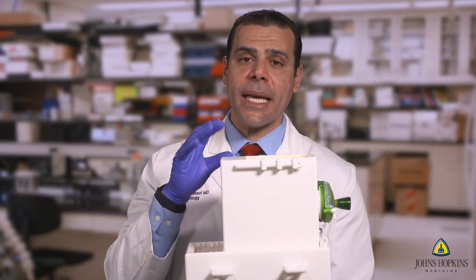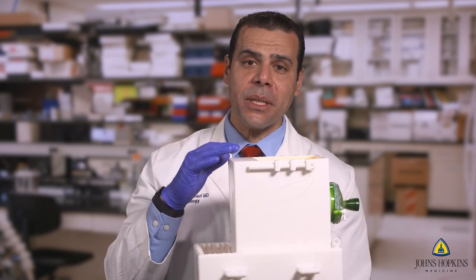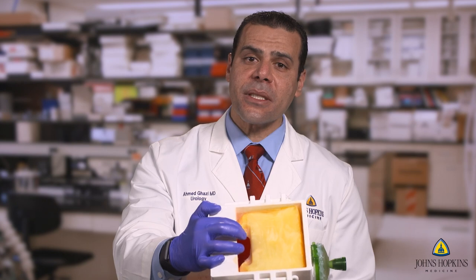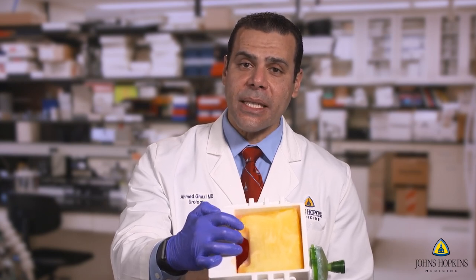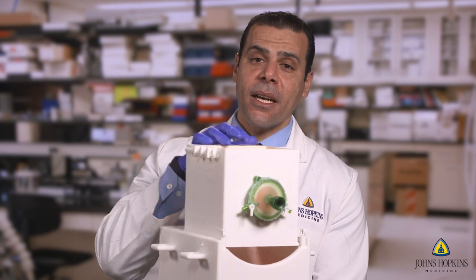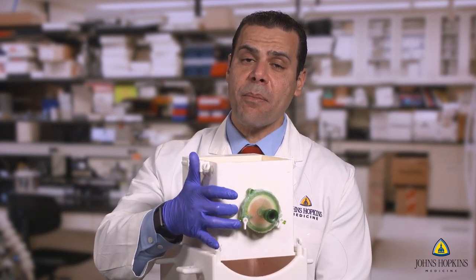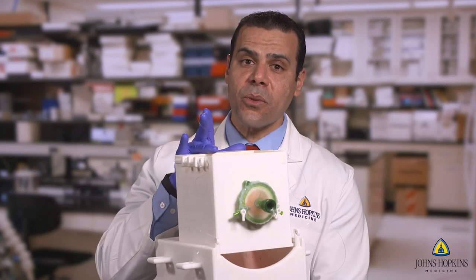This is the casing of the actual model that's 3D printed and designed completely in our lab. The insert is right inside there, and as you can see, the hydrogel bladder matches with the 3D-printed bladder exactly. We've created a gel port through which the endoscope can be inserted and match up with the urethra, and it is completely watertight with no leakage whatsoever.